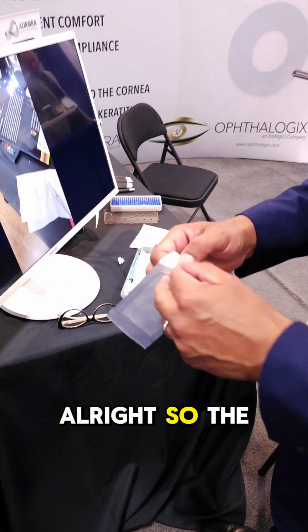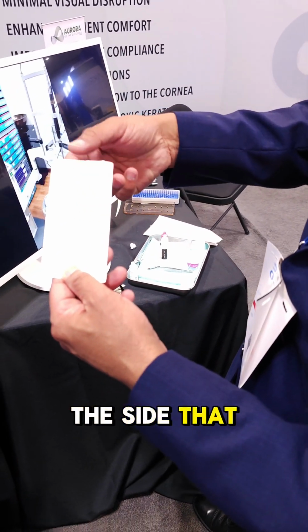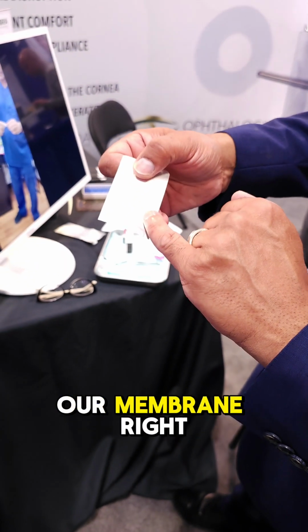All right, so to see the way it comes packaged, there's sort of an arrow here and here. You want to open the side that the arrow is pointing to. That's already ready to go. Open. If I open this too quickly, you can see our membrane right down here.